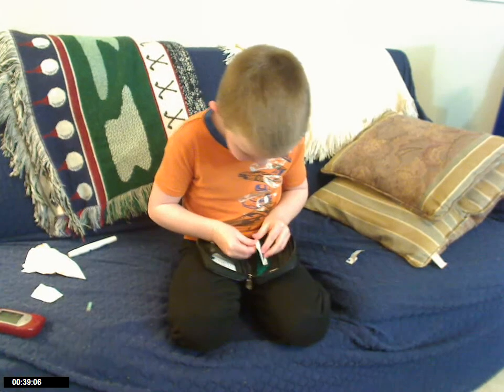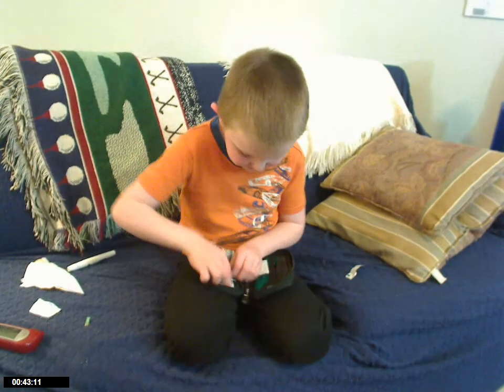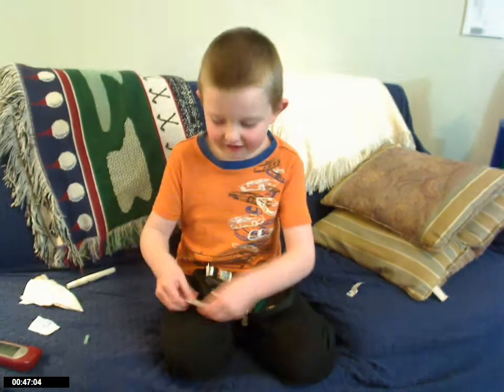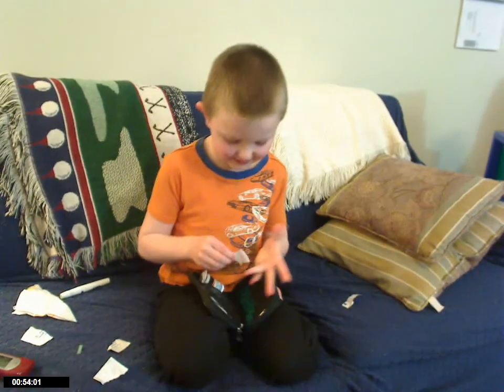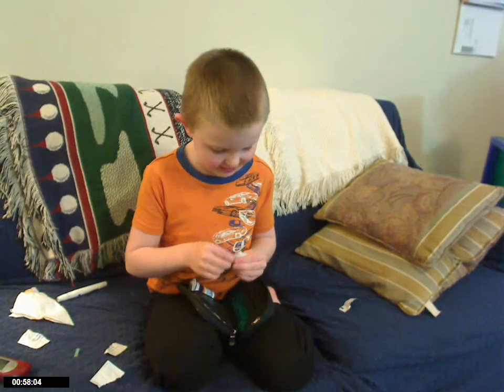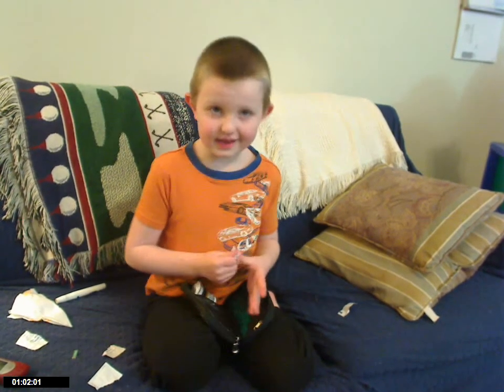So what do you have to do first? What are you doing to your finger? First we take an alcohol wipe, and you wipe your finger — your thumb — to make it nice and clean. Yes.